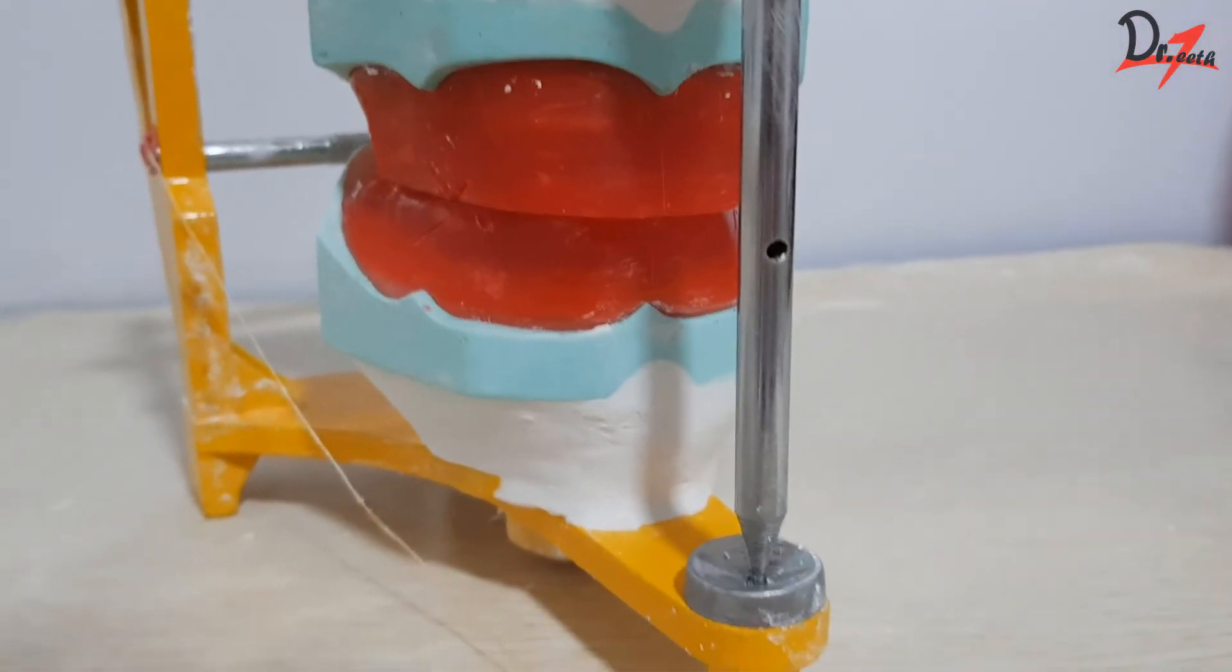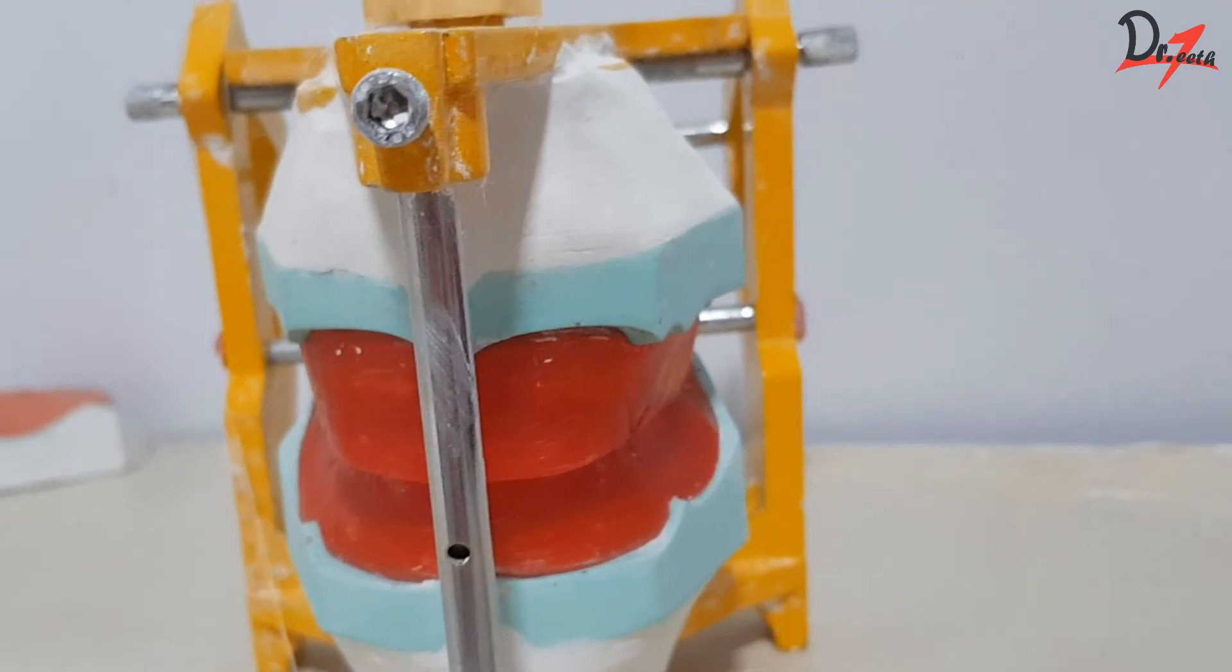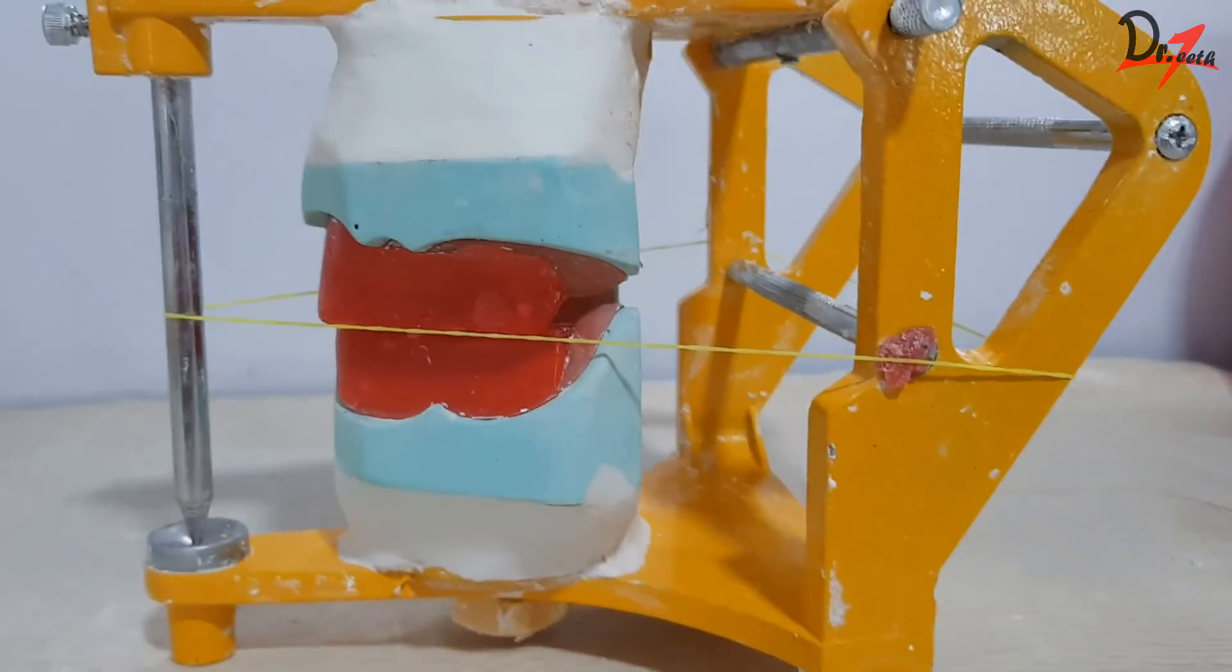So, this is the final result. We still require little sandpapering to smoothen the plaster.